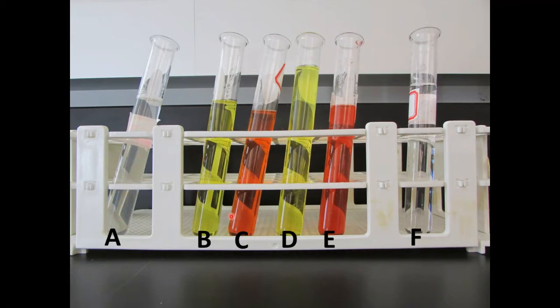Red is not normal. This generally indicates that there is blood in the urine, and that will be the case in this particular lab. So right now, please pause the video, jot down some notes in your chart before proceeding to the next images, which are going to show you the urinalysis test strips for each of these different urine samples.